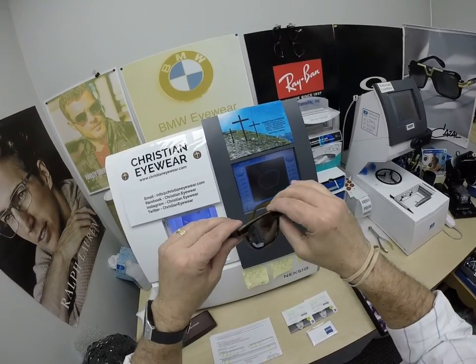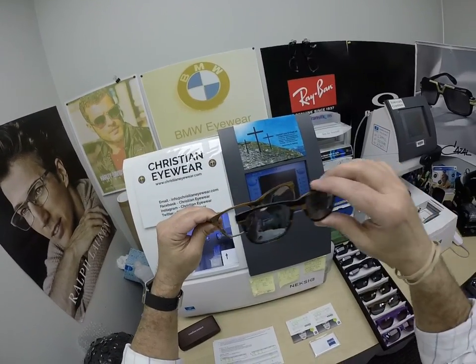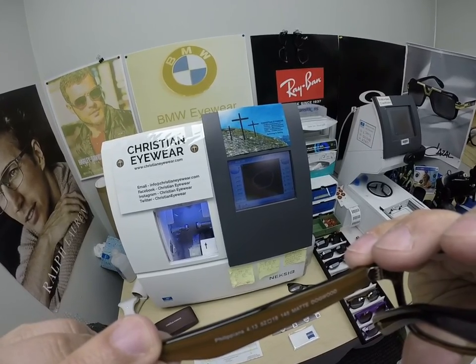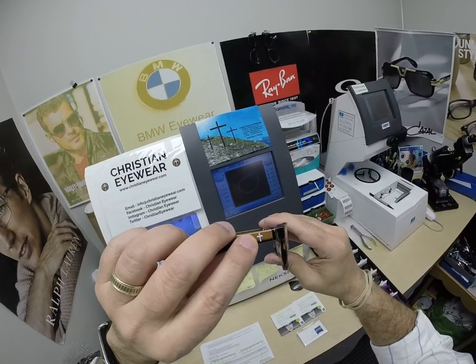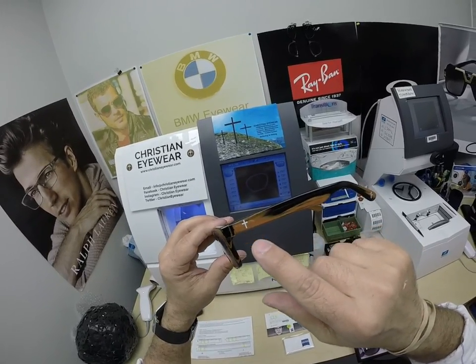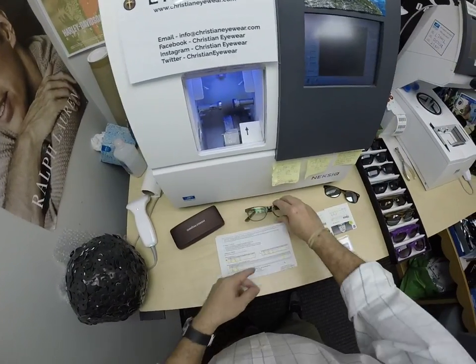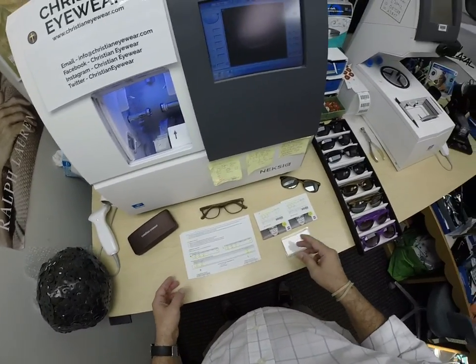This is the Her Frame with her Zeiss progressive lenses. It comes with a polarized magnetic clip-on, and we'll get to that in just a moment. This is model number Philippians 413, which is 'I can do all things through Christ who strengthens me.' This is size 52, color matte dogwood with the silver crosses. There's a silver cross on each temple and temple tip. I joke around a lot — I take my work very seriously, but I don't take myself that seriously.